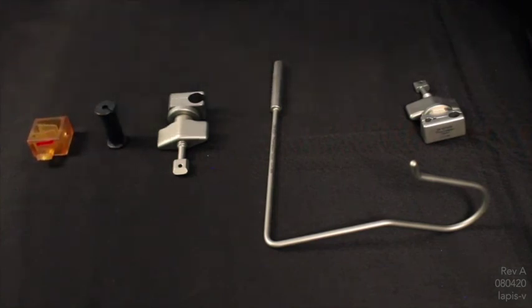And the scope clip provides a less firm hold, allows for quick in and out panning of flat scopes. Clips may be custom ordered to any size.